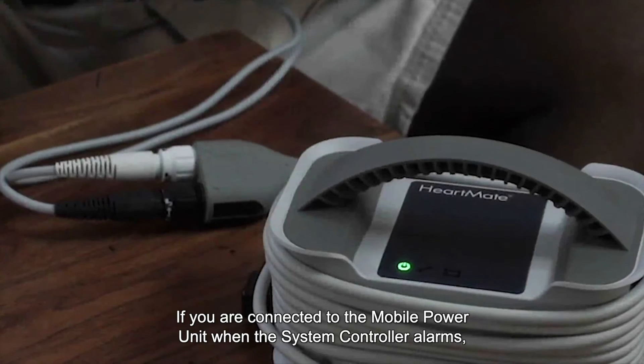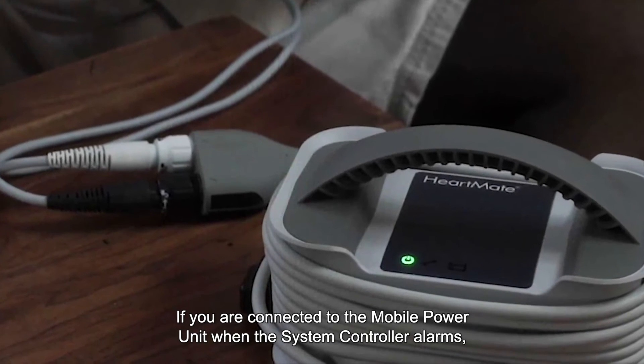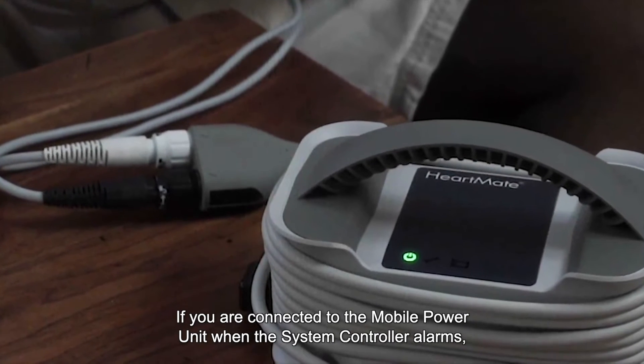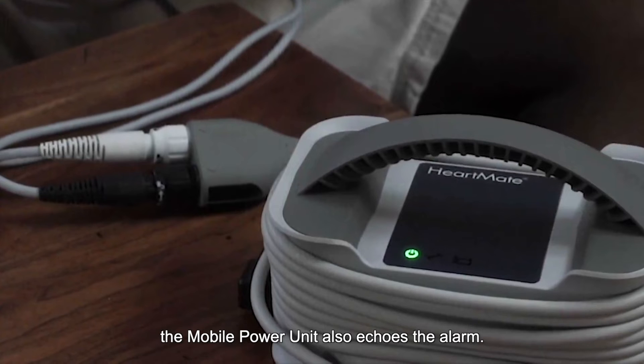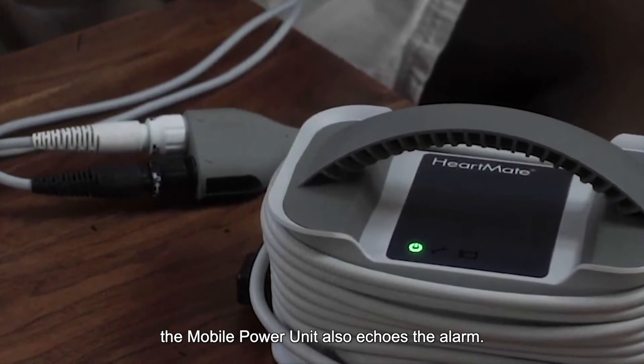If you are connected to the mobile power unit when the system controller alarms, the mobile power unit also echoes the alarm.